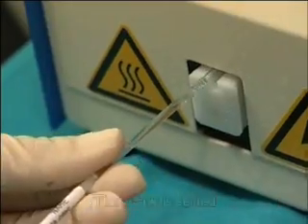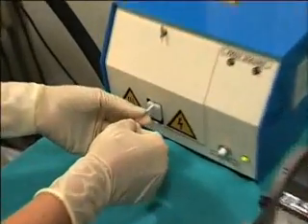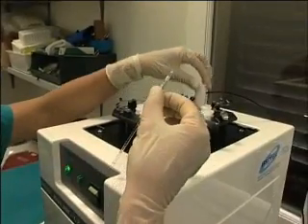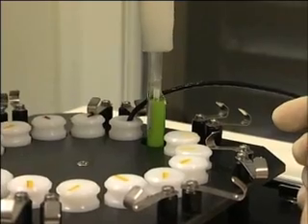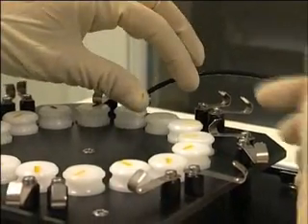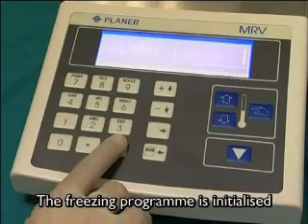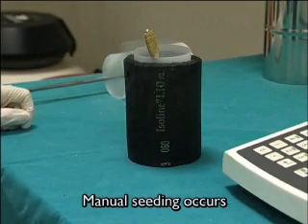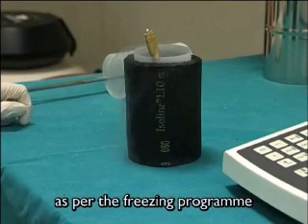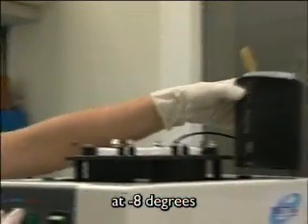The straw is sealed and transferred to the freezing machine. The freezing program is initialized. Manual seeding occurs, as per the freezing program, after 3 minutes in the hold ramp at minus 8 degrees.